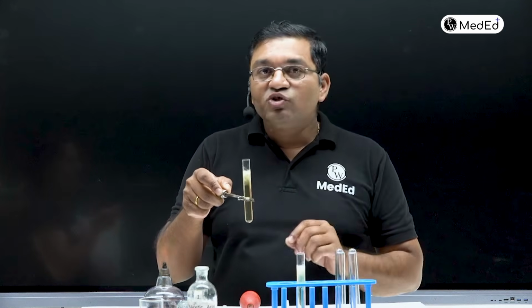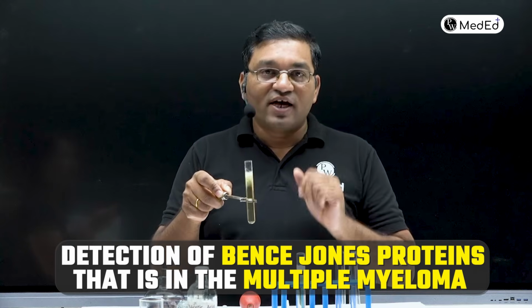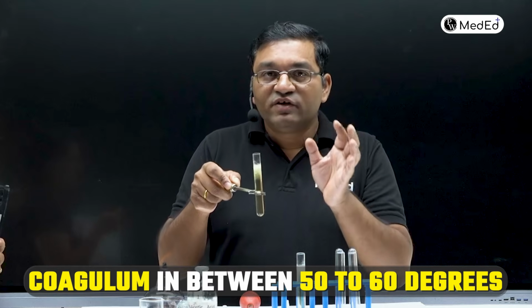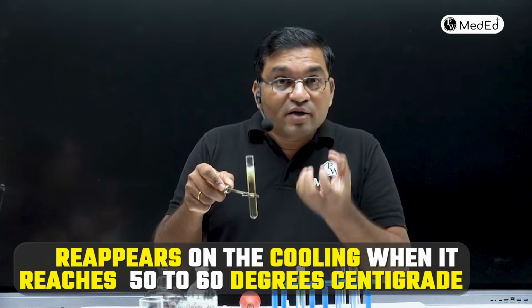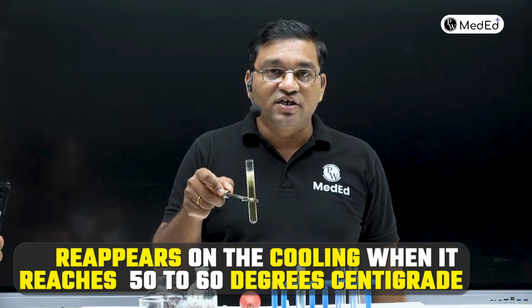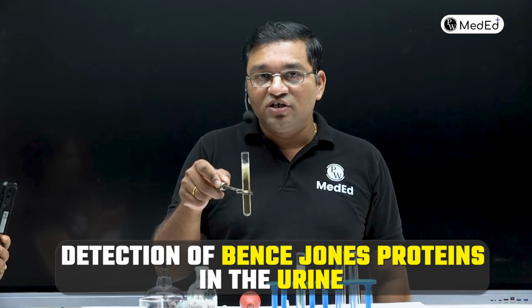Also it can be used for the detection of Bence Jones proteins, that is in multiple myeloma. It has a typical characteristic. It will show the coagulum between 50 to 60 degrees. And when the temperature increases, coagulum disappears and it reappears on cooling when it reaches 50 to 60 degrees centigrade. So it is also useful for detection of Bence Jones proteins in the urine.